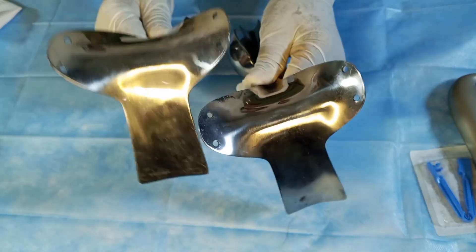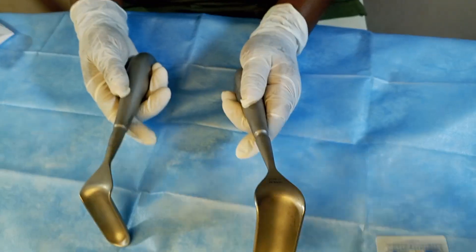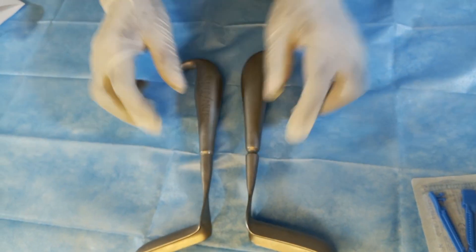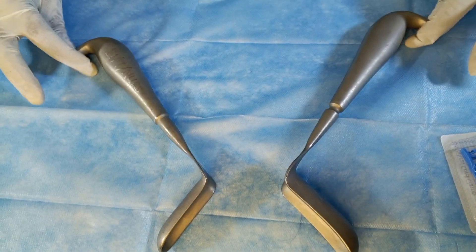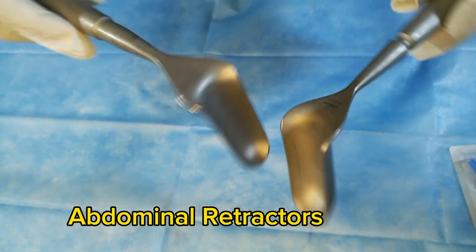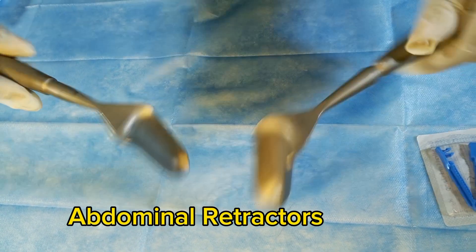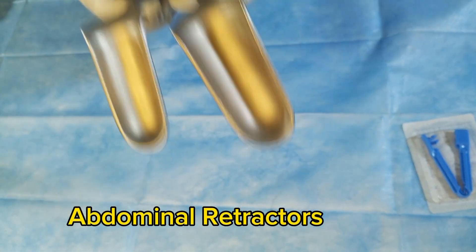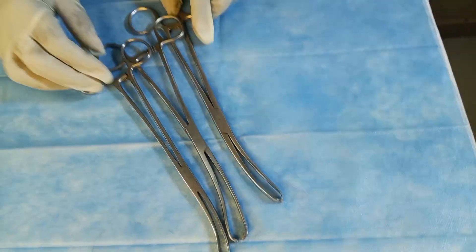The next forceps are also called abdominal retractors. They are used to retract the abdominal wall during surgeries.